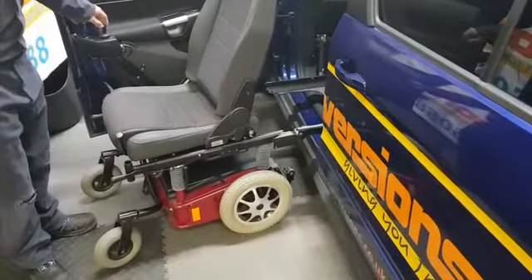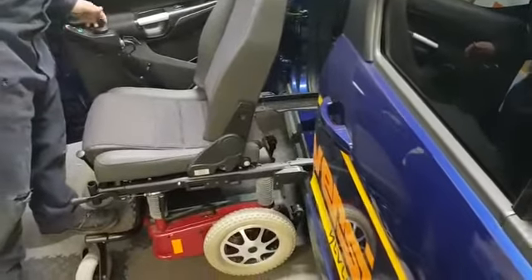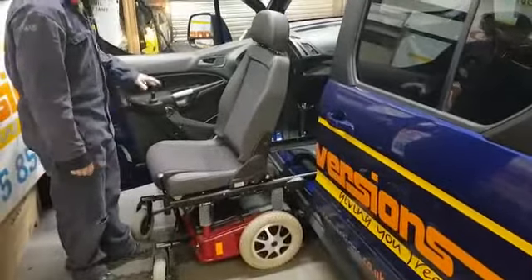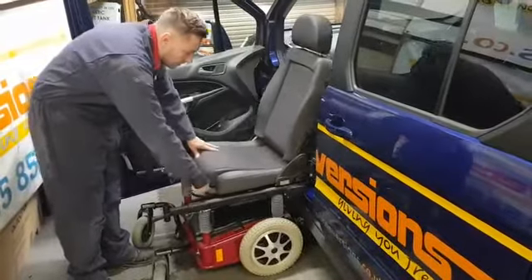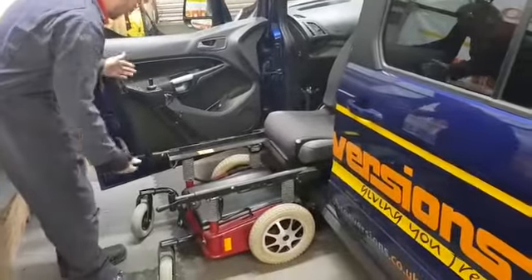So we can then back up to the car. That one's clicked in, and then that one's clicked in. Switch it off just so you don't knock it as you're going through. Press the slider down, and then the chair just slides back.